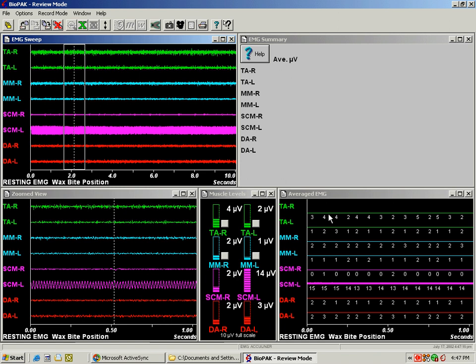Electrical noise can be differentiated very easily from muscle activity. First of all, you will see here in SCM left we have a noisy channel, and what this shows is a solid thick band of activity, as opposed to these more normal resting levels here shown in the other muscles.